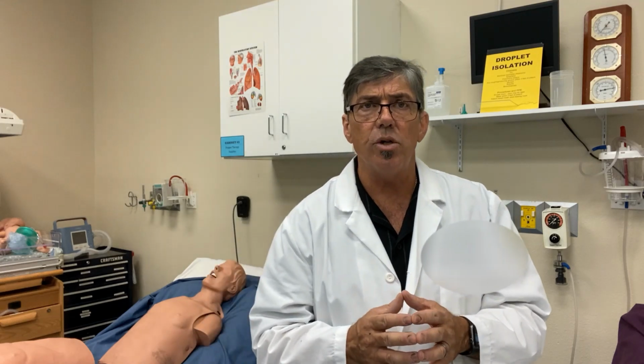The Hope nebulizer comes with a package insert that allows a therapist to calculate the dosing by adding saline and how much bronchodilator to the nebulizer to have an output of how many hours. It is very important that you follow those directions completely and precisely, but some hospitals these days are requiring pharmacy to be involved in the mixture of medications in that way. So make sure that you follow your hospital's policies and procedures.